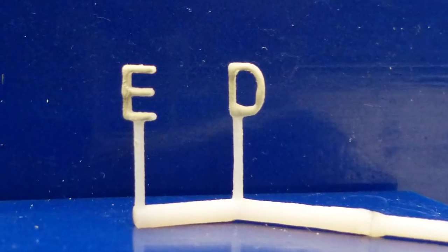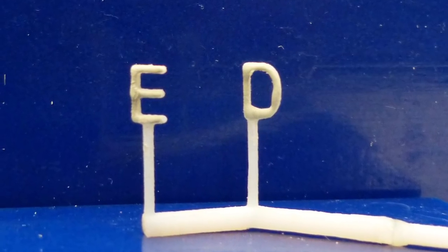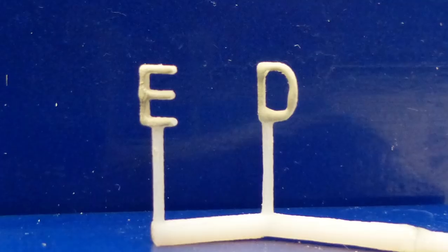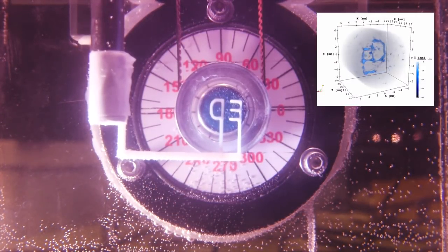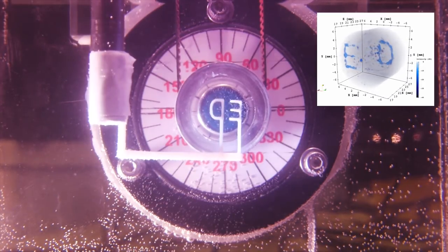The researchers tested this by submerging two 3D printed plastic letters in a small tank of water. When they activated the ultrasound sensor, the letters were able to be picked out of the data and pinpointed in 3D space.